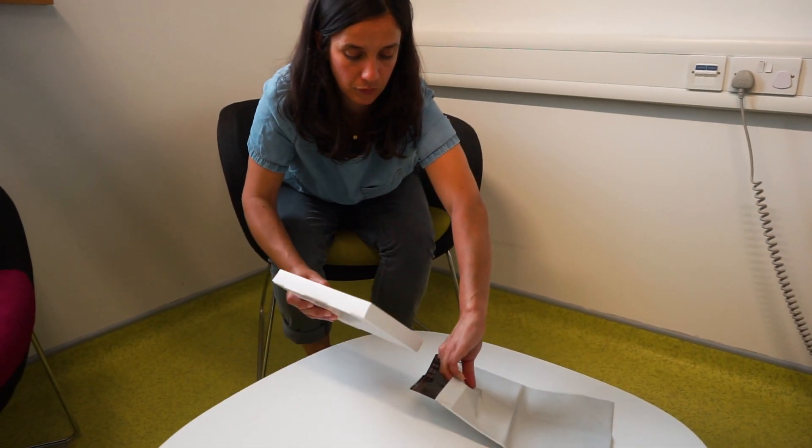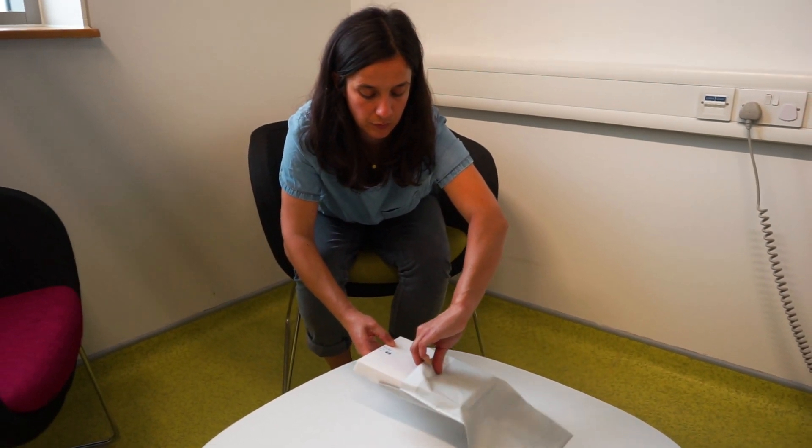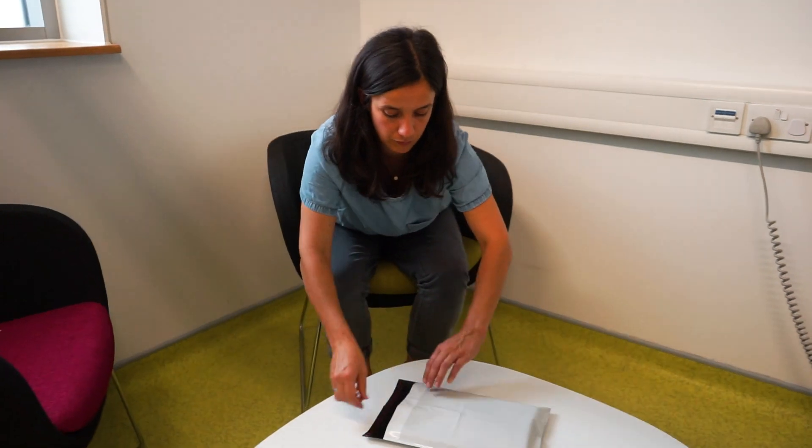To return your sample, put the white box into the prepaid mailer envelope and pop it into any post box.